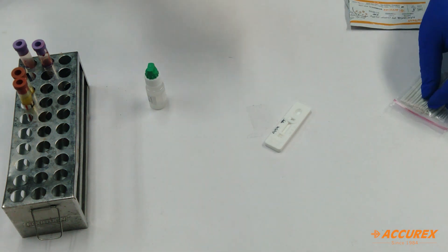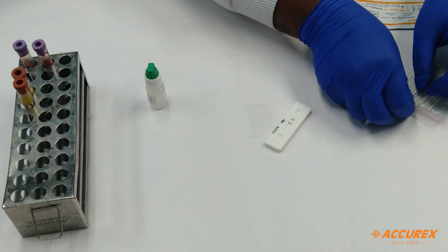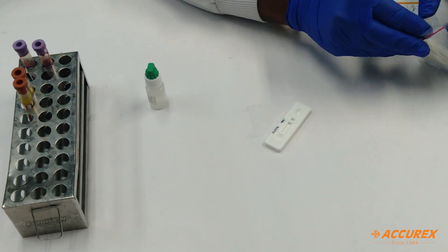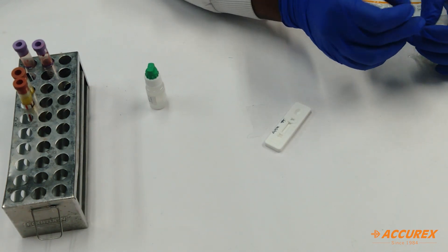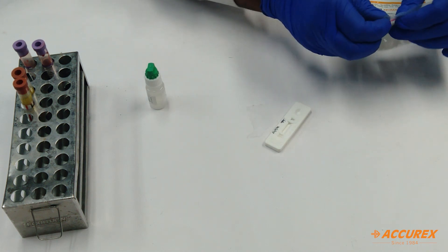For testing, you will require the EDTA sample or you can also use the fingertip sample. Only 5 microliter sample is required. So with the kit, you will get the buffer.